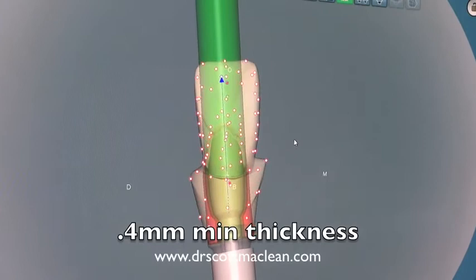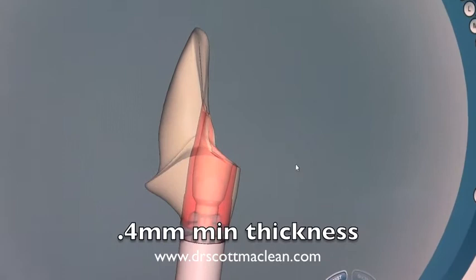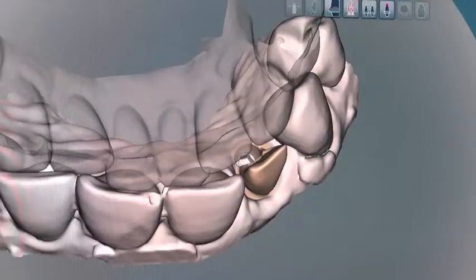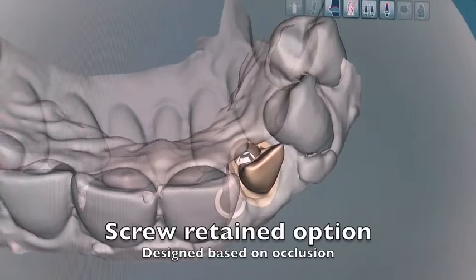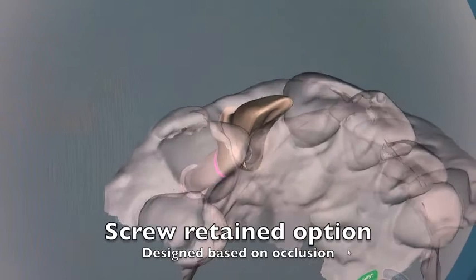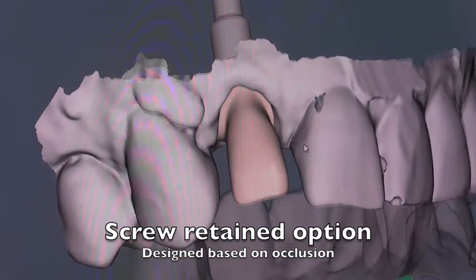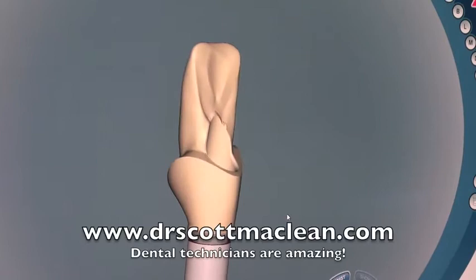The minimal thickness for the abutment is 0.4 millimeters of zirconia, and we want to make sure we have that. The computer will actually stop you if you don't have that thickness — it won't let you mill it. Now we have a number of factors coming into this systematic approach: a Noble Active implant with a conical connection, a zirconia abutment fitting on top that's customized below the tissue with a 3D emergence profile, and customized on top of the tissue with a crown form reduced by 0.75 millimeters so we have the ideal porcelain thickness. You get this very smooth, perfect type of structure that's going to be sent to Nobel BioCare for milling.